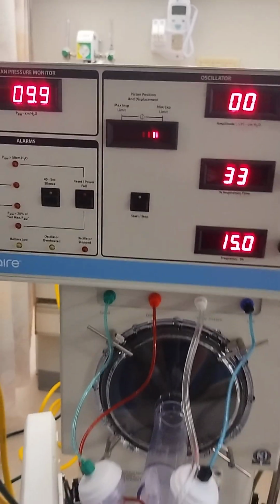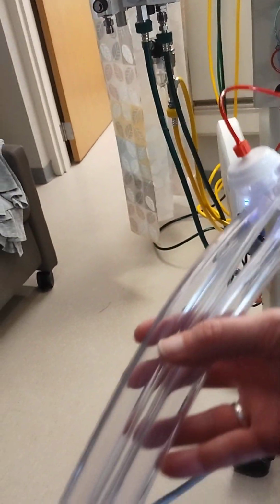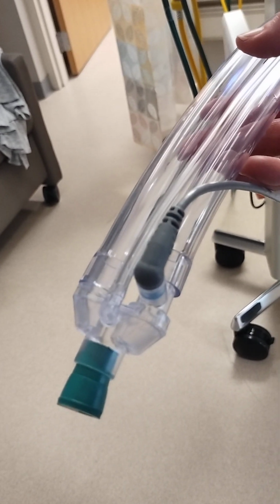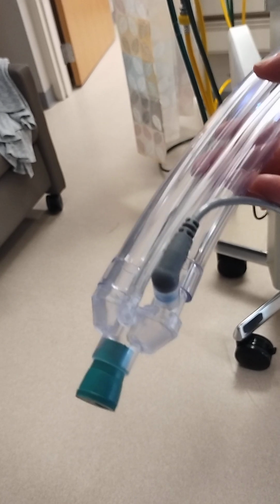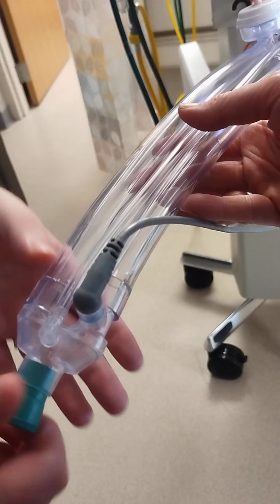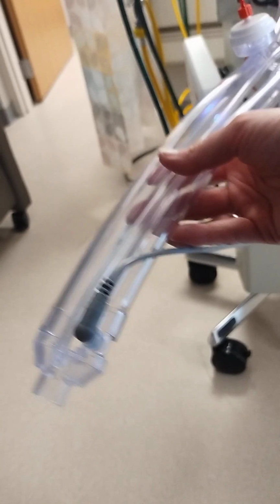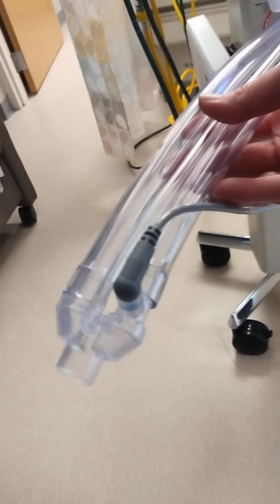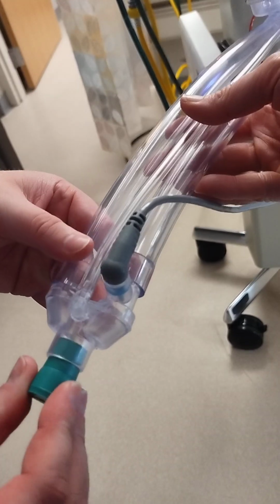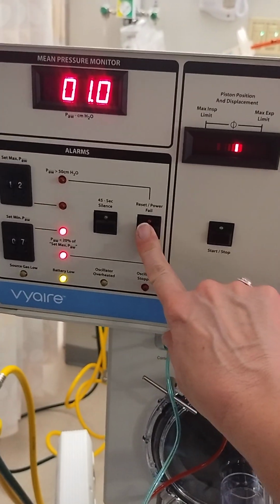So for the next part, we would be attaching it to the patient. So we're going to adjust our amplitude after we attach to the patient. So I'm going to have my colleague pull out the stopper because that's going to cause us to need to reset. So here the stopper would be out. We're attaching to the patient. Go ahead and reinsert the stopper. We'll say that's our patient attachment. And now we're going to need to reset.